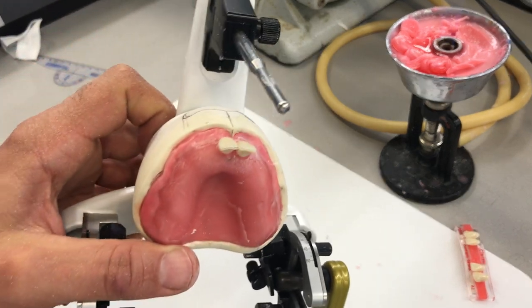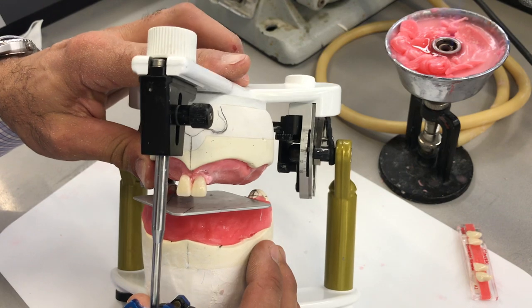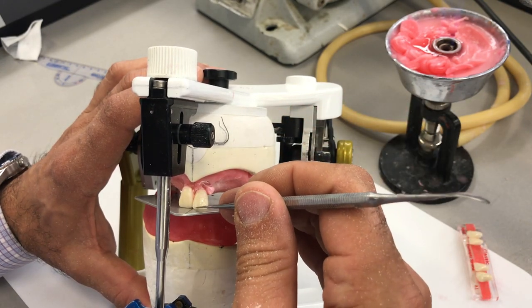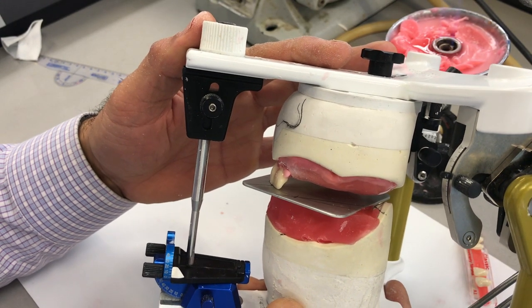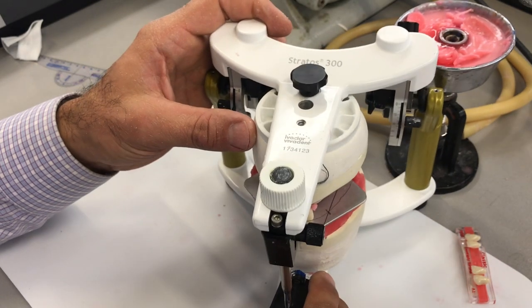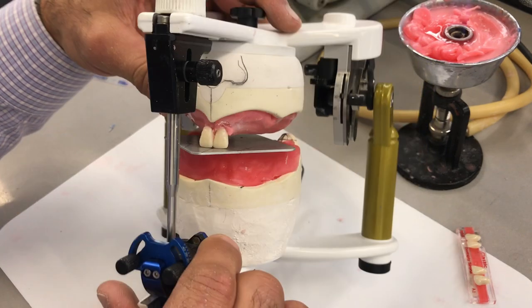It's now slightly more lingual than before. I'll close the articulator and see how this relates to the plane of occlusion. When I hold it from a side view, the 2-1 is slightly lingual to the 1-1 — I like that better. Very often you're going to have to trim teeth to get them in the right position, or trim the base, or both. That looks pretty good.